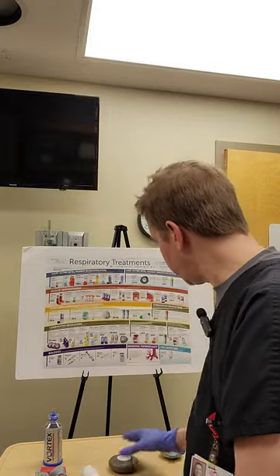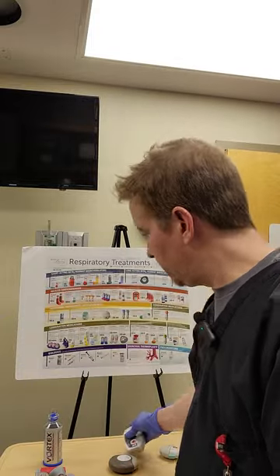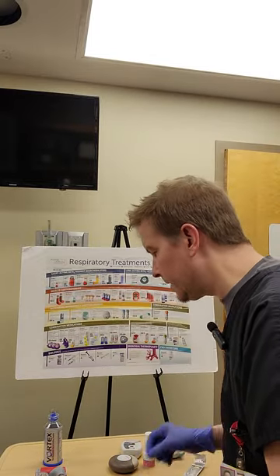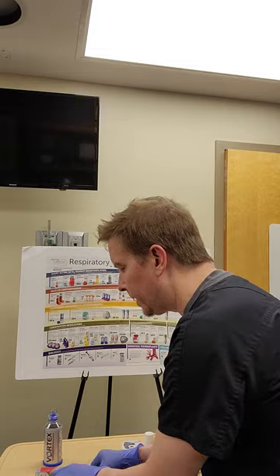Notice the similarities across these devices — you open it and click. Ellipta: open it, click. Asmanex: open it, click. Pulmicort does the same thing too, and that's also an inhaled steroid. The pattern is consistent across DPIs.